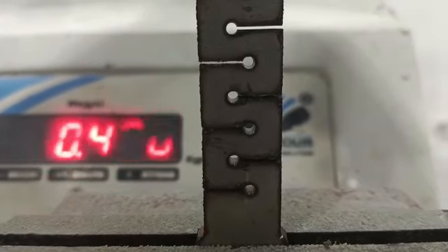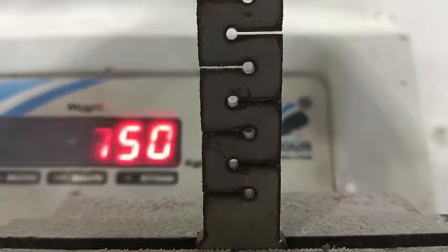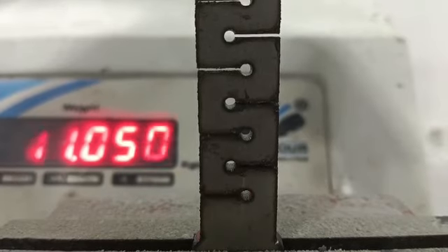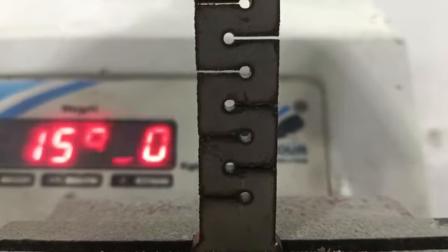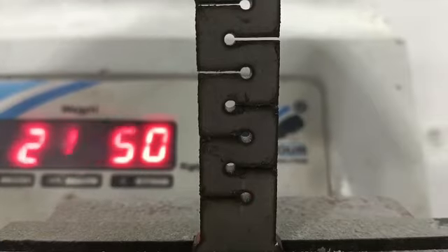This is our KELUS micromotion plate. The aim of this plate is to provide micromotion at the fracture fragment and fast healing. We will go up to 20 kg and come down to 0 kg to check the micromotion of this plate.